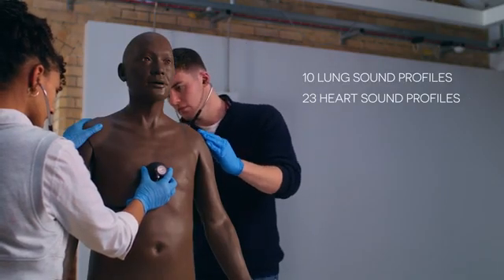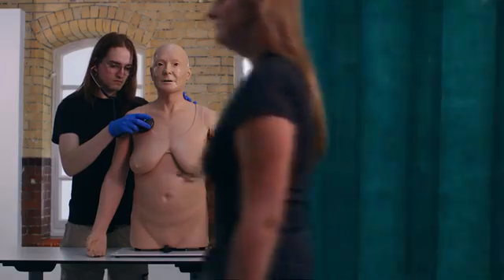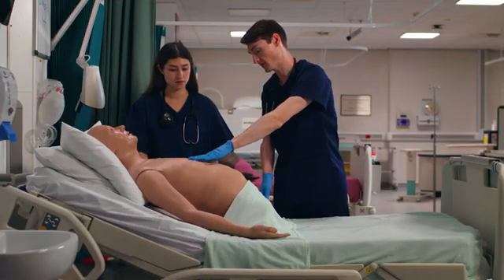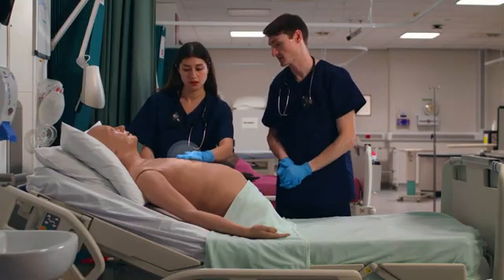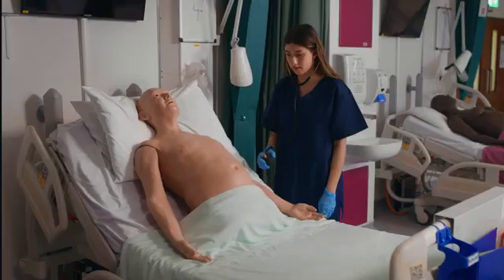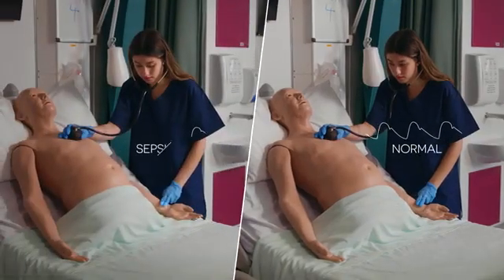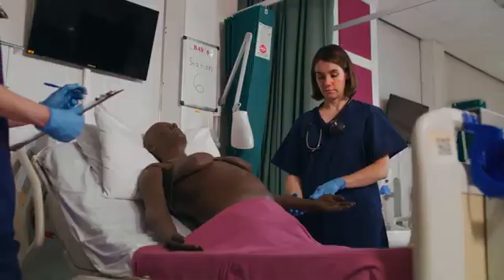These building blocks give a solid understanding before advancing to more complex scenarios. In the clinical section, users can select and play any of the 31 realistic cases ranging from common to more infrequent conditions. The patent-pending technology allows the synchronization of pulses, lung, heart and mouth sounds with chest movement.